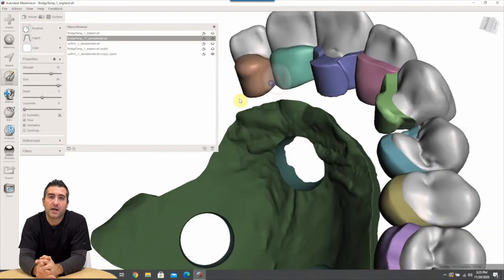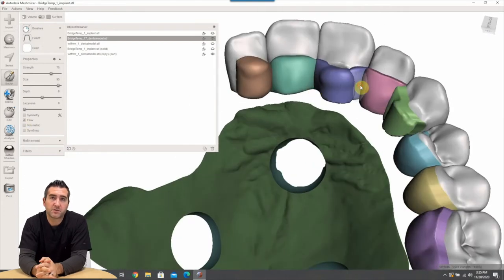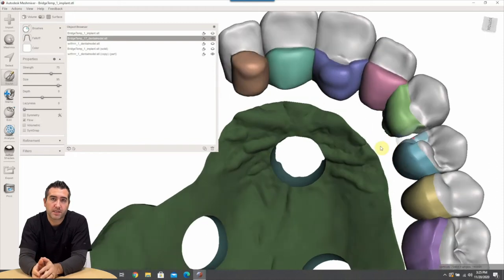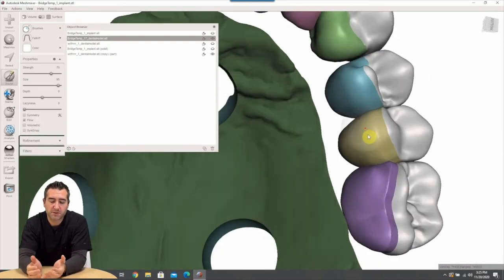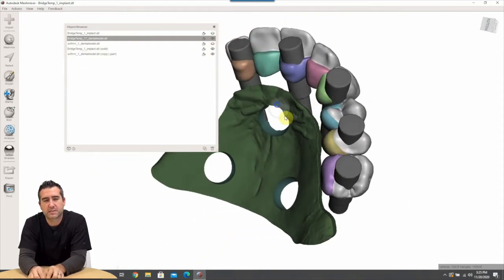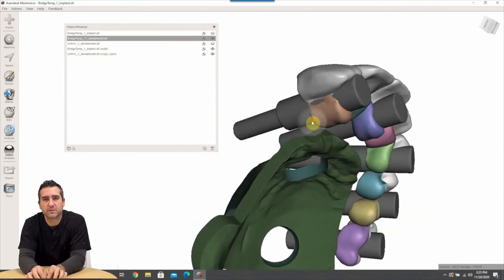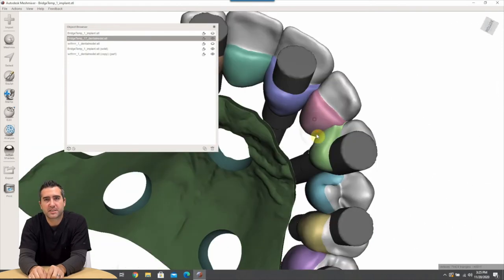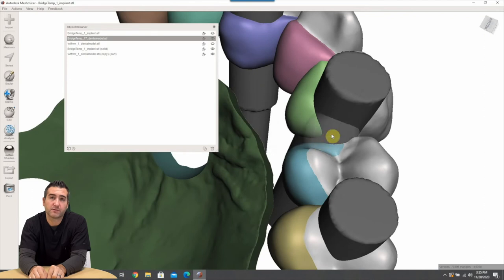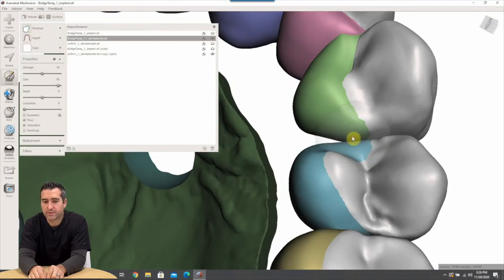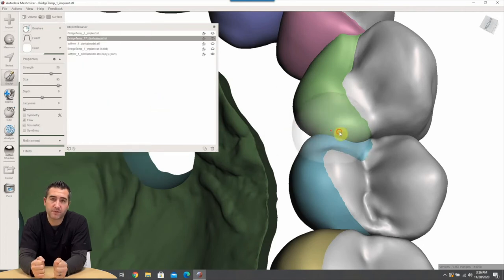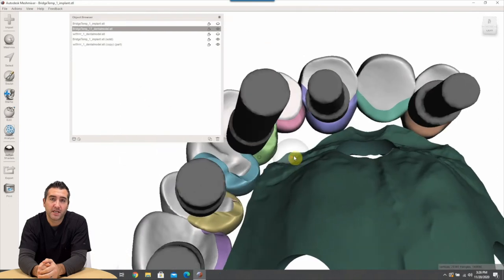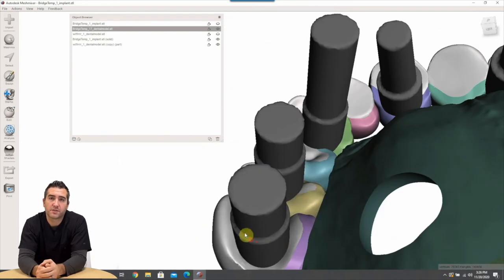But we're going to bulk this out. You need to go ahead and strengthen this because you're going to be immediate loading right. And the immediate load success is based off of the stability gained from the prosthesis. And if you break this prosthesis during especially during the critical initial healing time, you're basically dead in the water right. You're going to be moving those implants and torquing them as the patient bites and you're done. So you're toast.